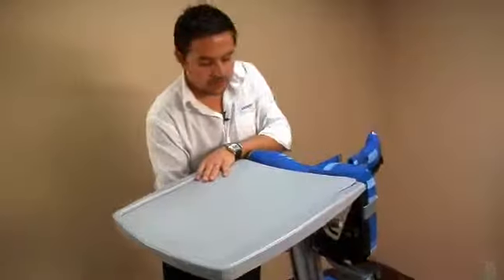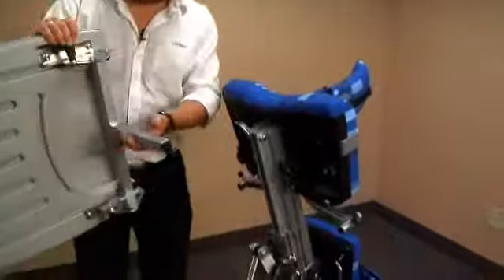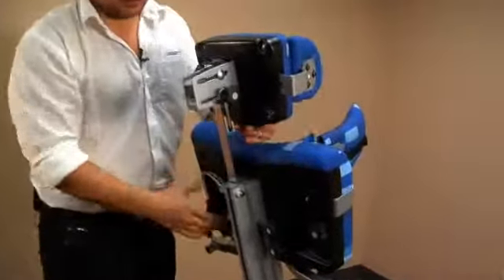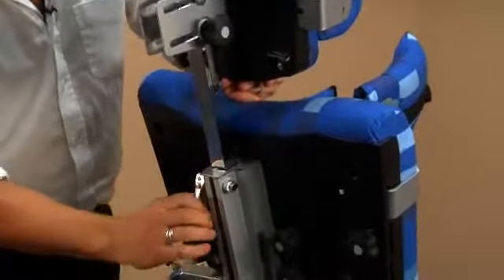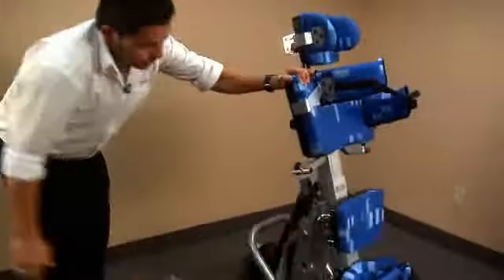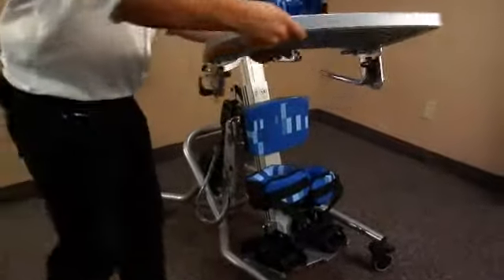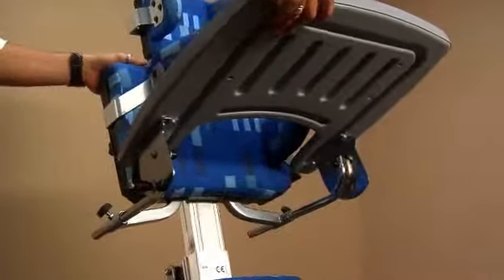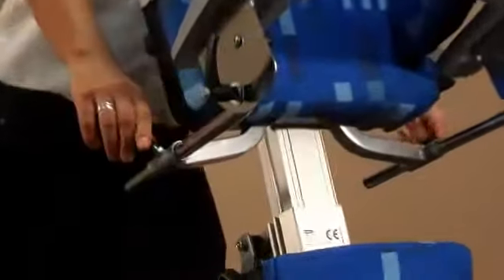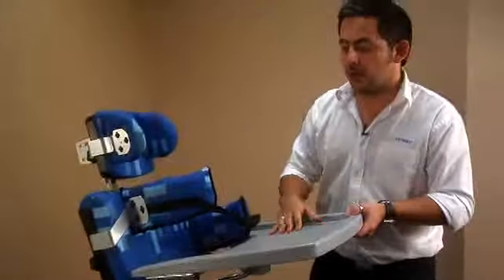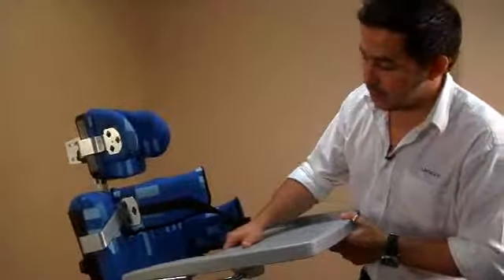To then swap it back to supine, loosen off the cam lever, take off the tray, put the head support back in, get the required height, lock it off. You can see the pin pops out, so that's it. Safety in position, so always remember that little pin just as a safety device. Spin it round, and we'll put on the supine tray. So the supine tray slides into these two receivers, either side of the chest pad. Slide those in, get the required depth of the tray, and then just lock that up. And then at the side here, you have the ability to angle adjust the tray. The tray, like all the other trays, is made from a very durable ABS and is lightweight.